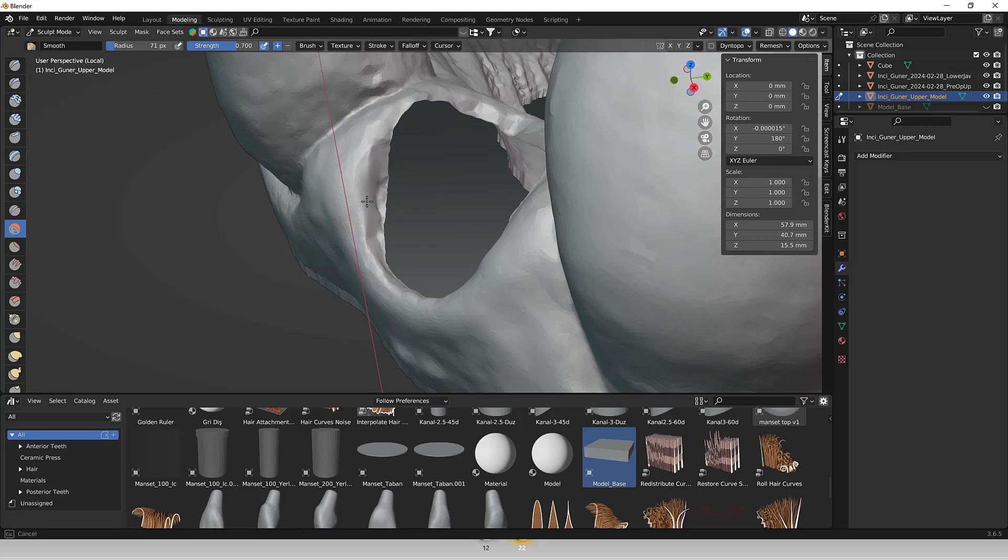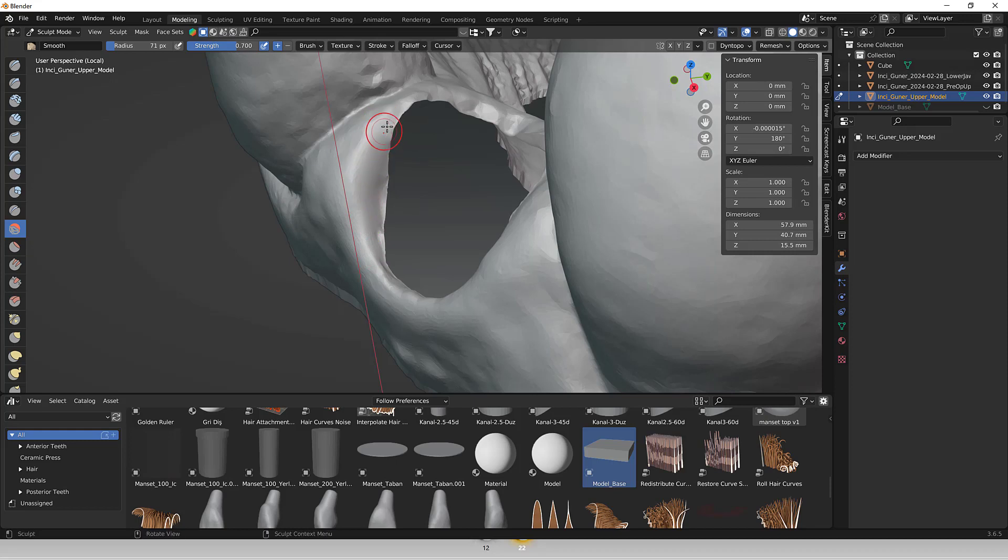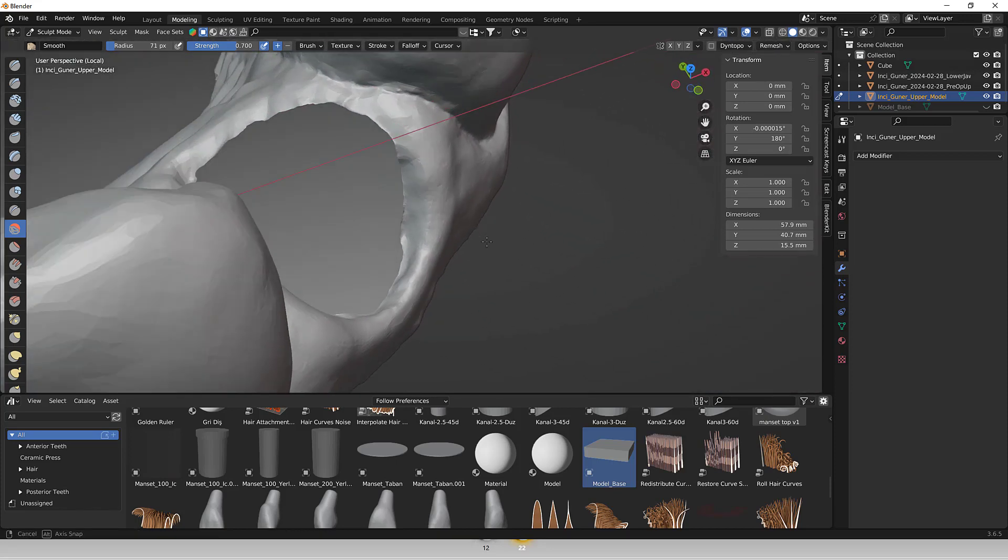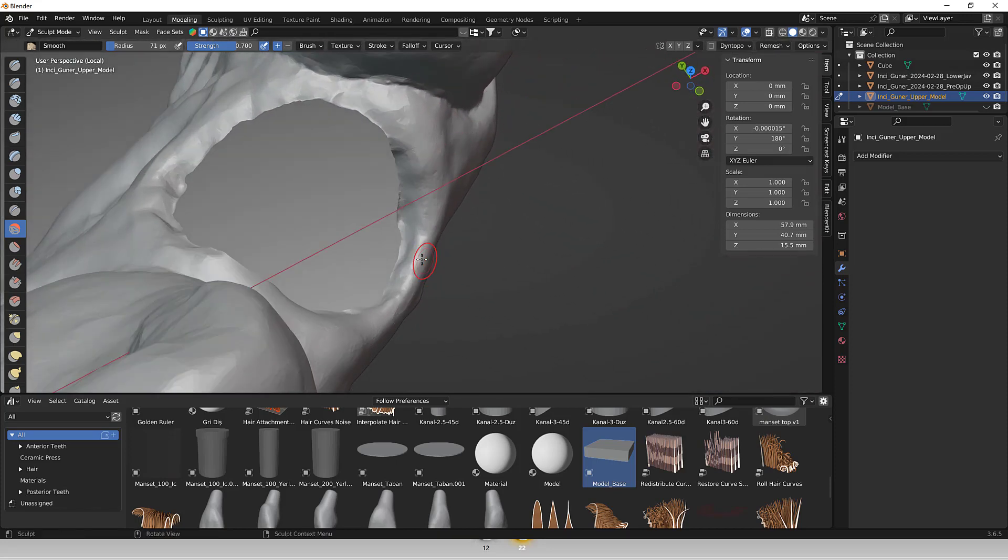Here you can see a model of a patient with an irregular gingival margin area that will be used for ceramic layering. In order to have a good fit and contour the gingiva with the restoration, we need to edit the STL model before 3D printing.